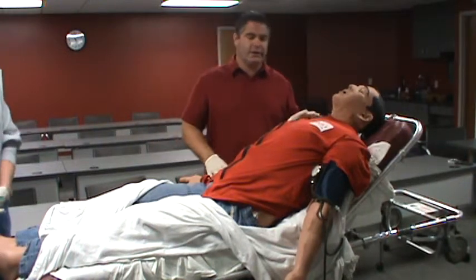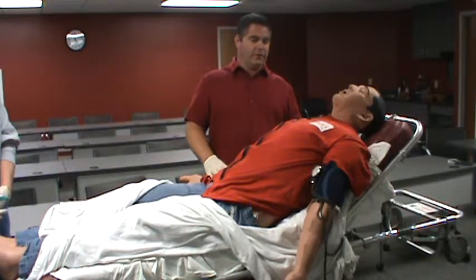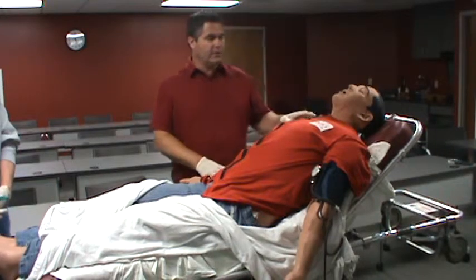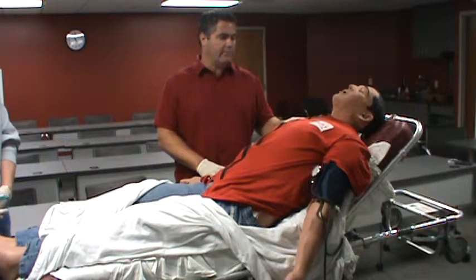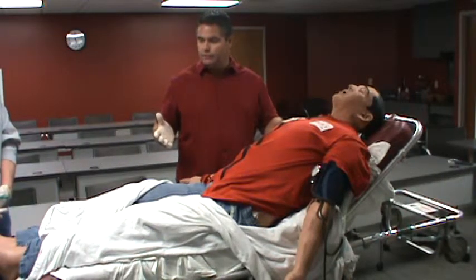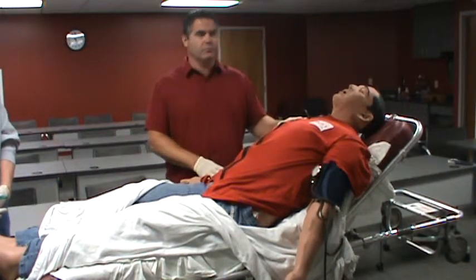This video is going to show you the high-fidelity simulator that we have here at Mercy Regional EMS Training Center. We're going to discuss the simulation process that you'll be going through. Our goal today is to find out all the functions of this simulator, describe how to handle him properly during the simulation process, show all the functions, where various pulse points are, and describe the high-fidelity simulation process.